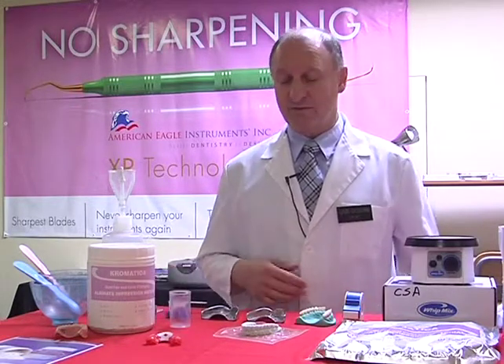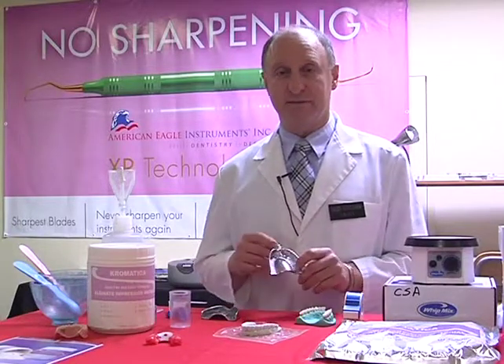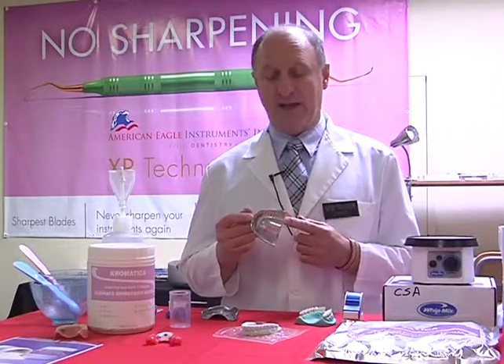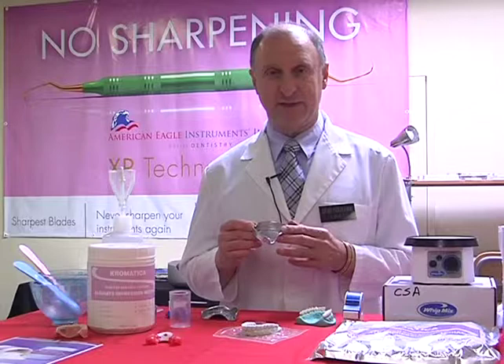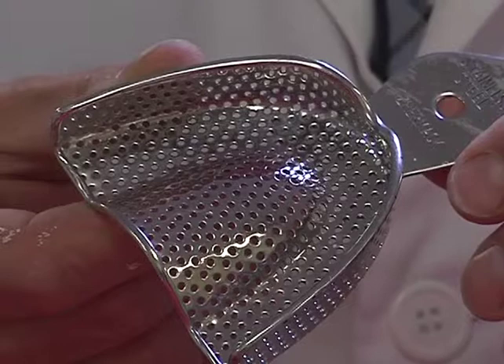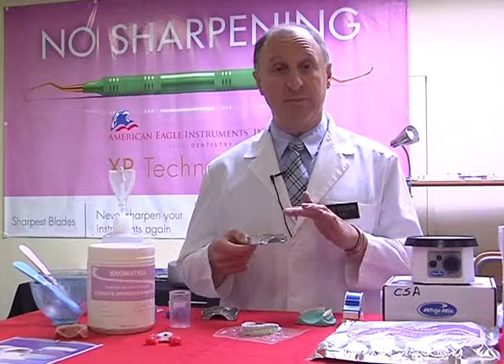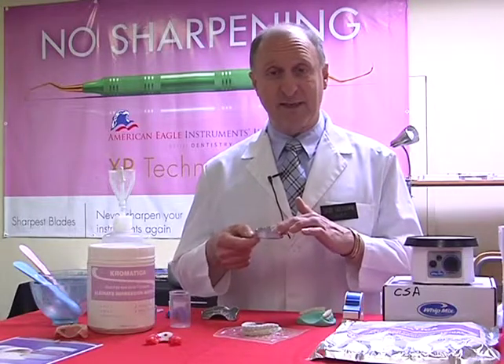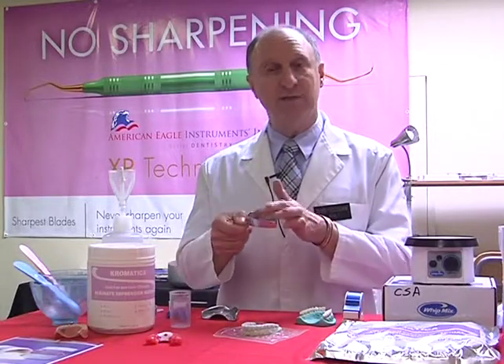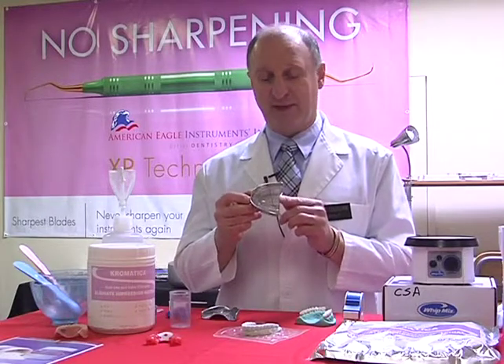There's a variety that we can choose from, and most people here in North America and Canada, I think most people that look at asepsis, sterilization, disinfection, use the perforated trays. I like to be able to compare the difference between the perforated, the solid trays, and then we'll look at the plastic trays. Now, think of it this way. The perforated trays, which are considered the most popular types of impression trays in the marketplace, we put our impression materials, our alginates, inside here. They're then put into the mouth, and the material flows through the impression trays. So we lose compression inside here. This is taking what we call a mucostatic impression.